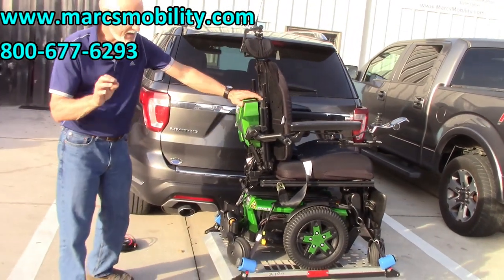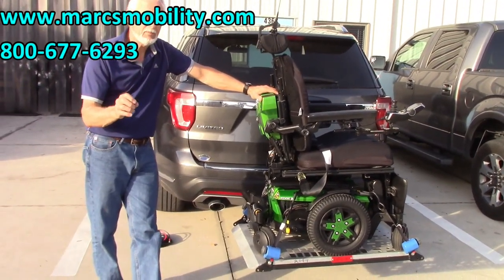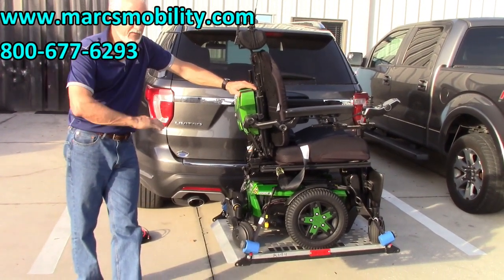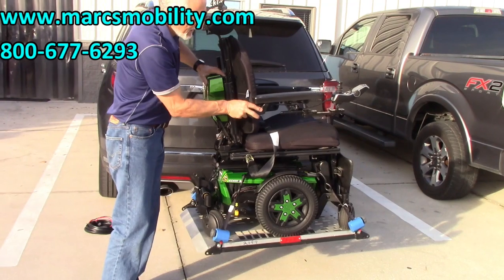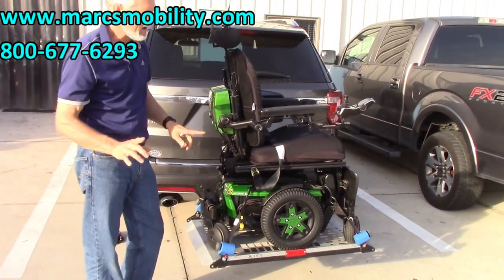When you're going down the road, be careful of speed bumps and railroad tracks — make sure you slow down a little bit. Other than that, if it's flat you can go 60 or 70 miles an hour with no problem. The chair will always follow the lift, following the frame. It's not going anywhere.